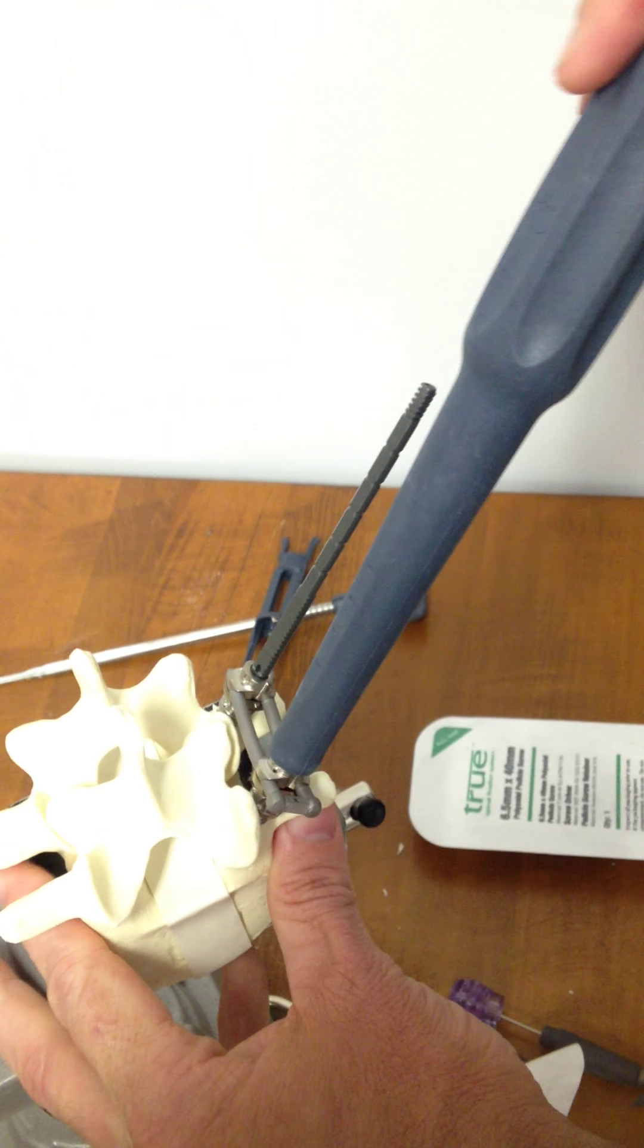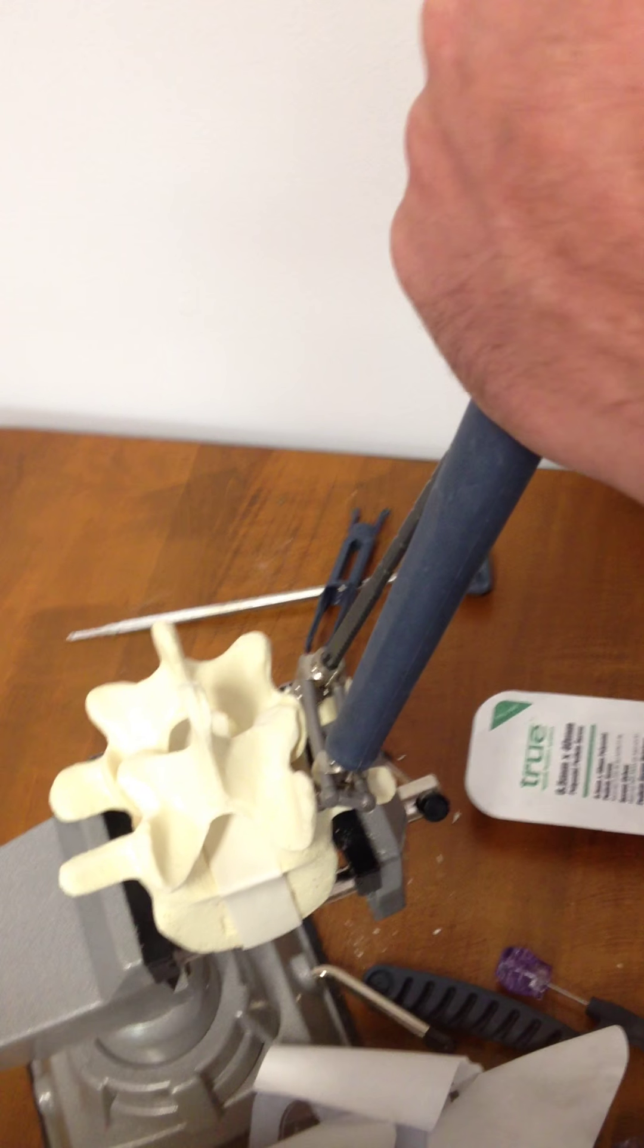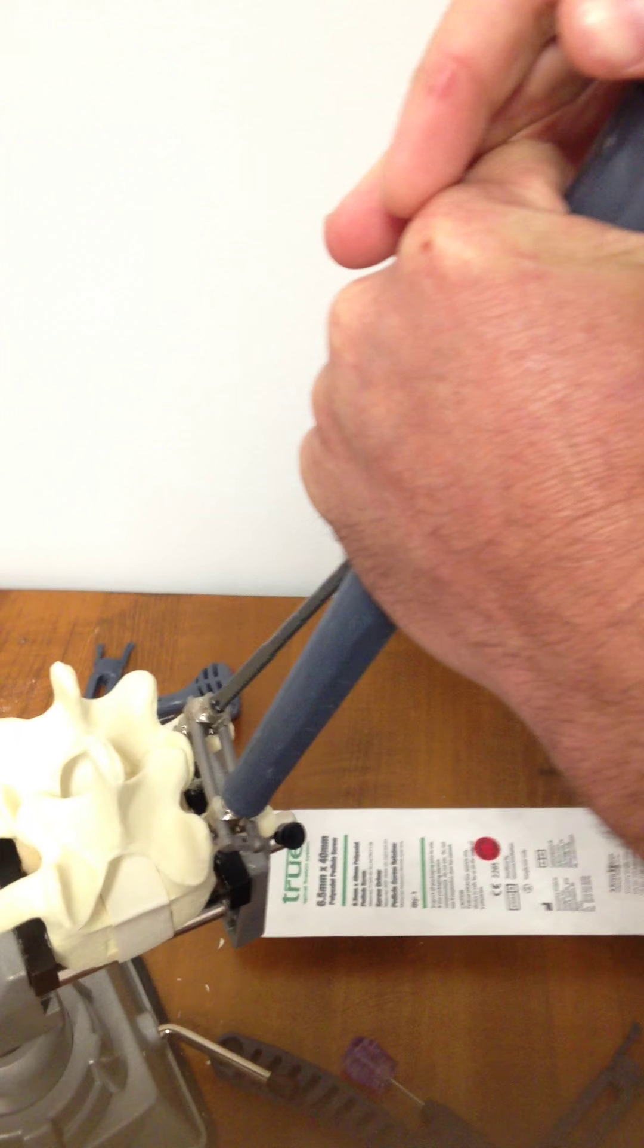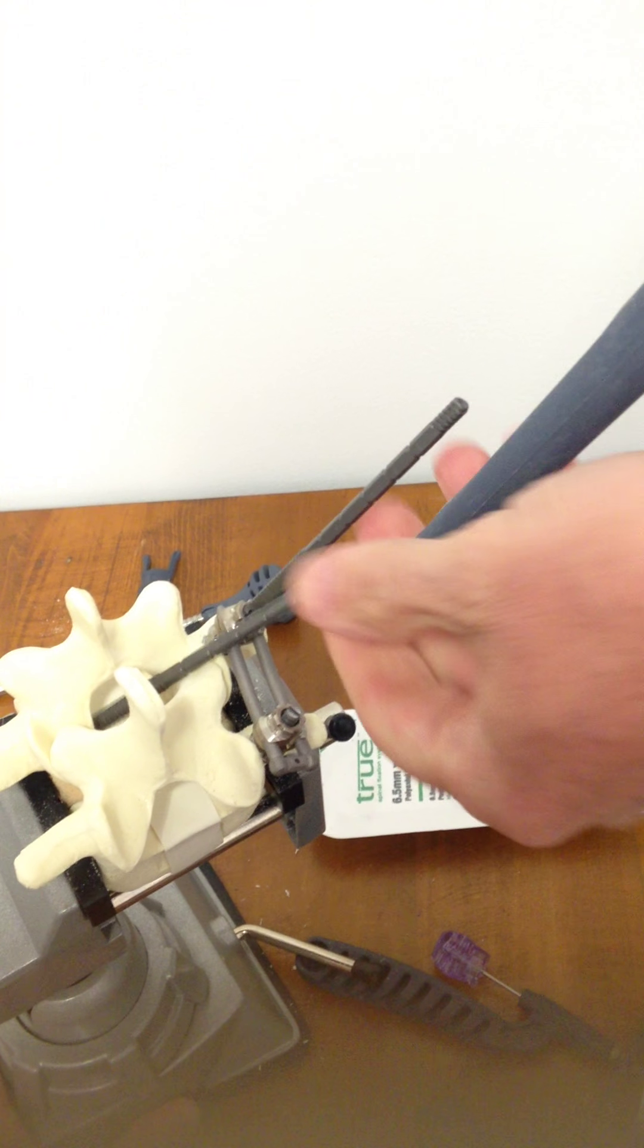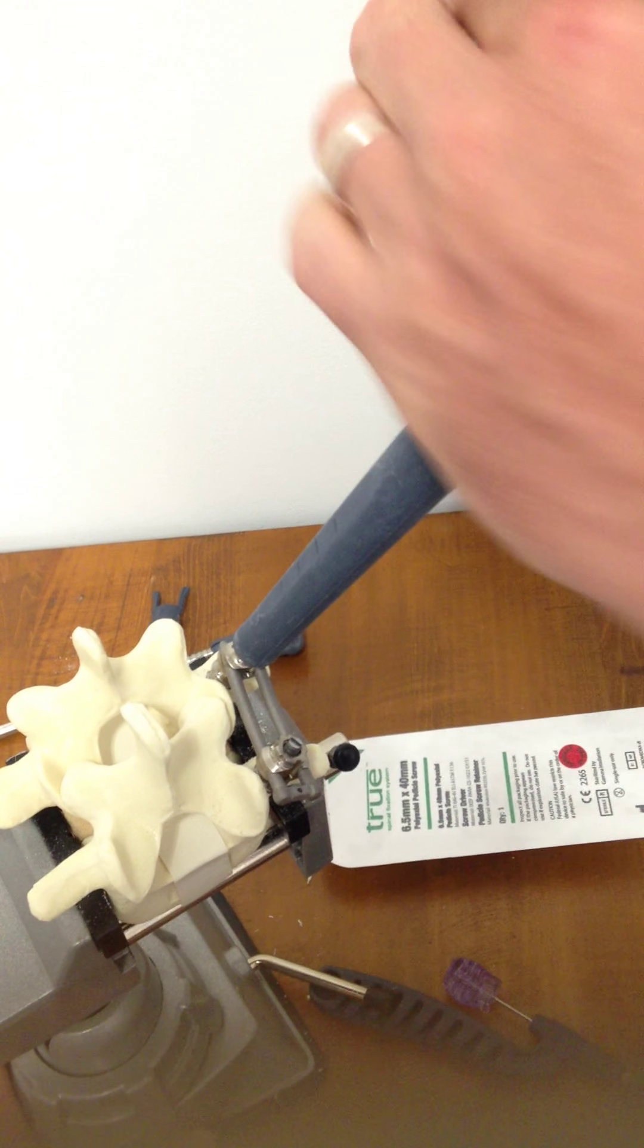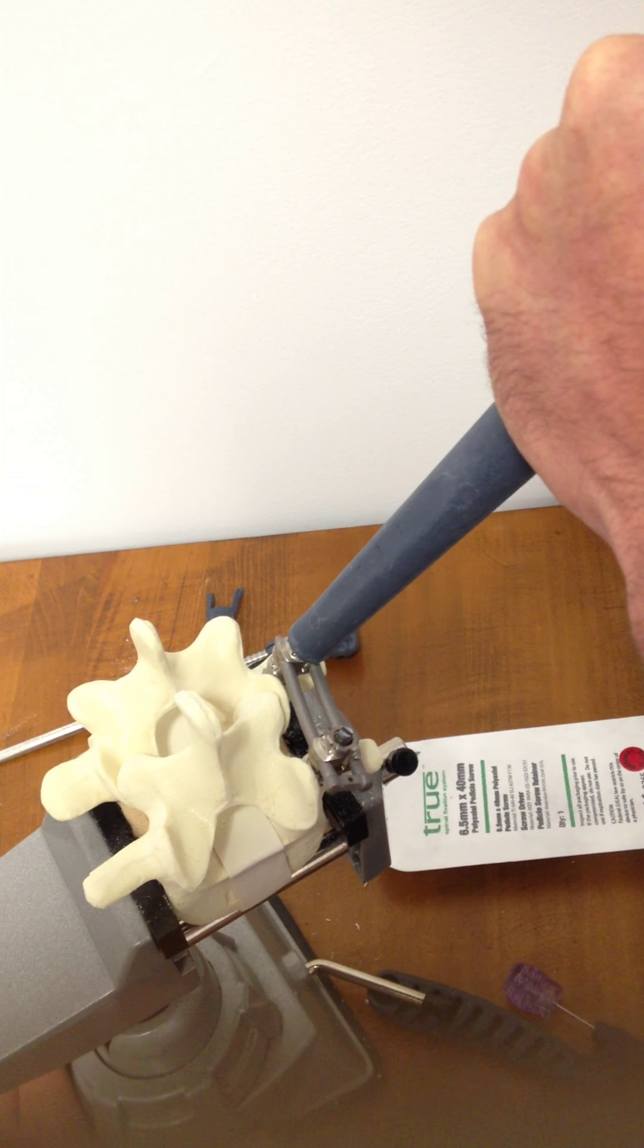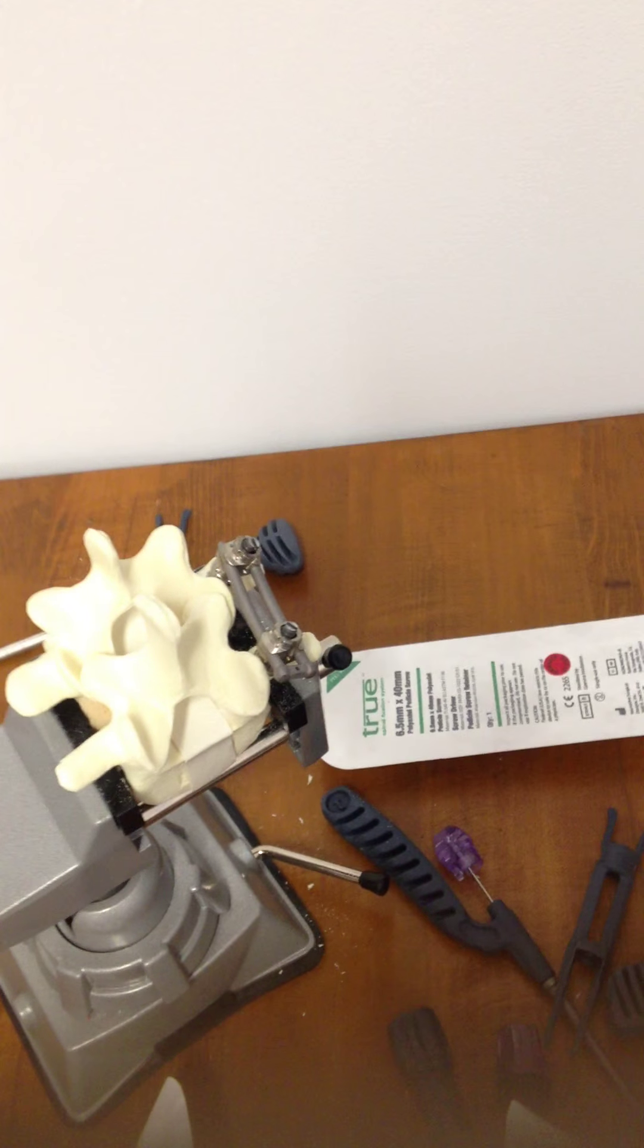On the construct, get it in final position. Rotate here. And that's breaking my shaft away, breaking the shaft away on the first screw, and break away on my second. And bring both of this up. That's the end of this video.